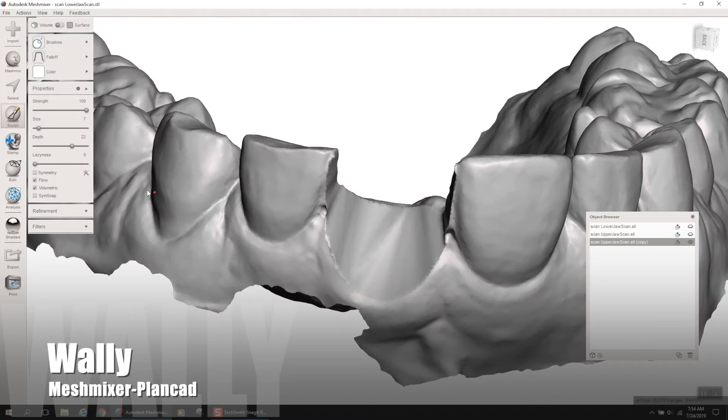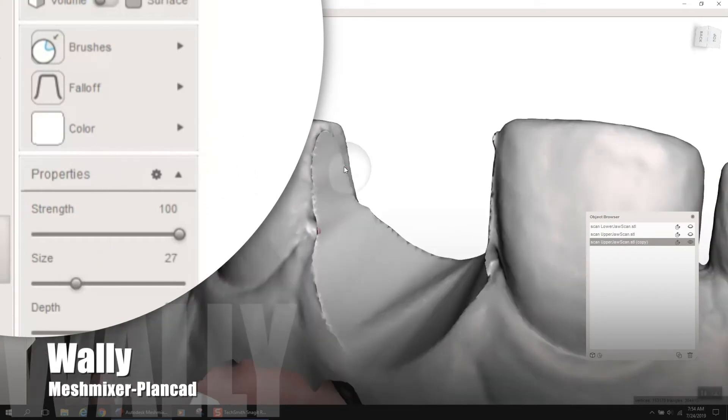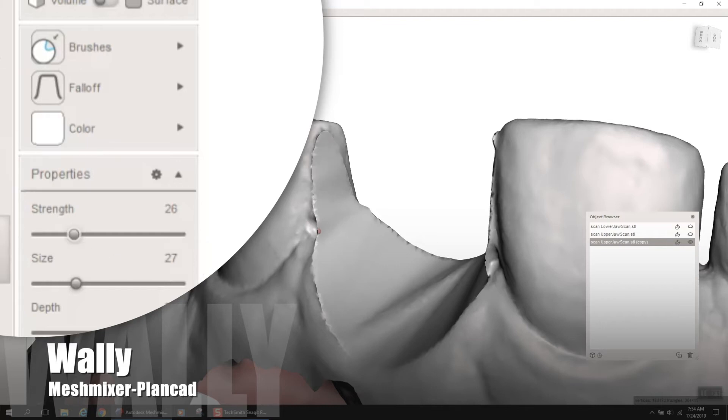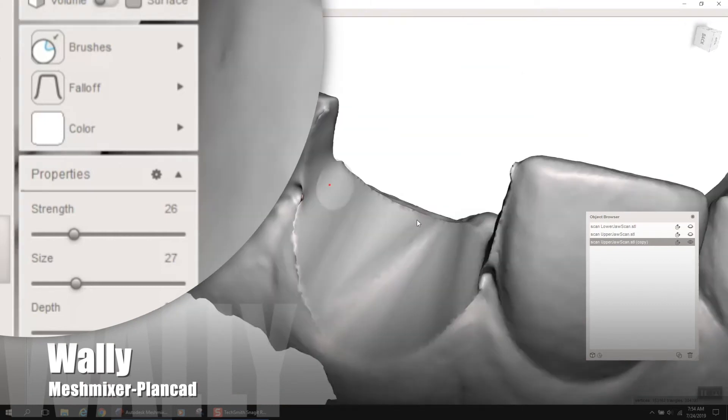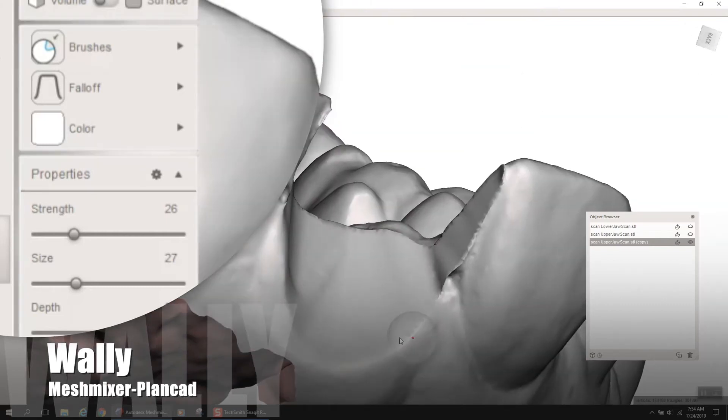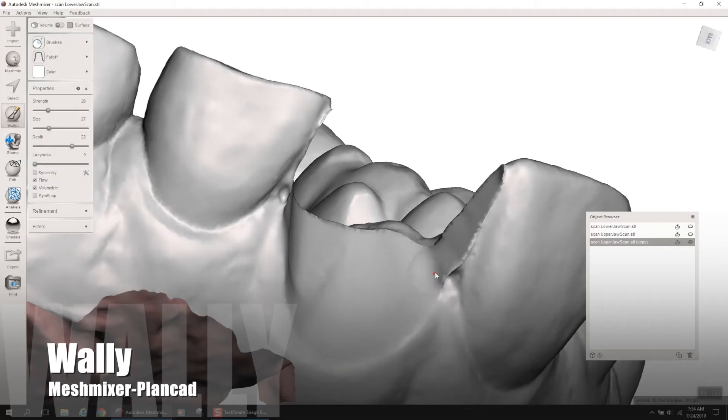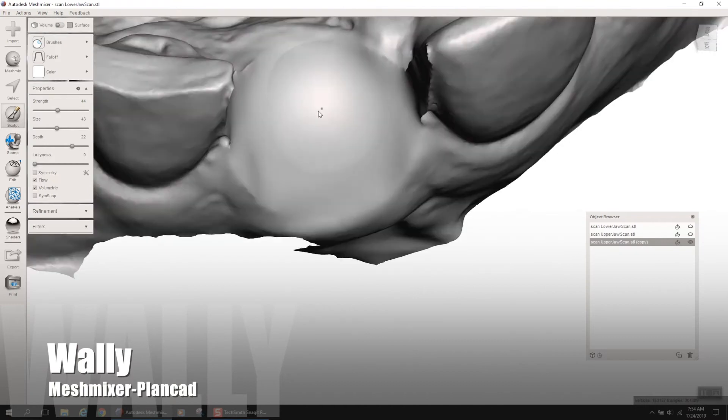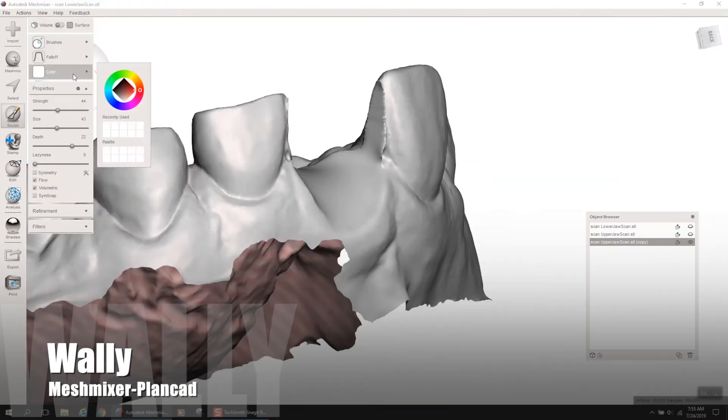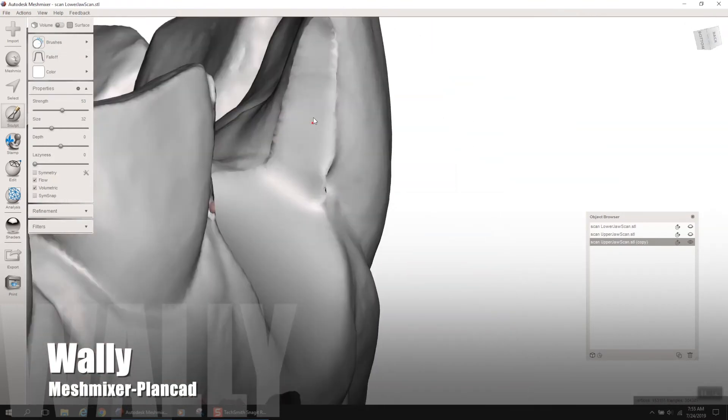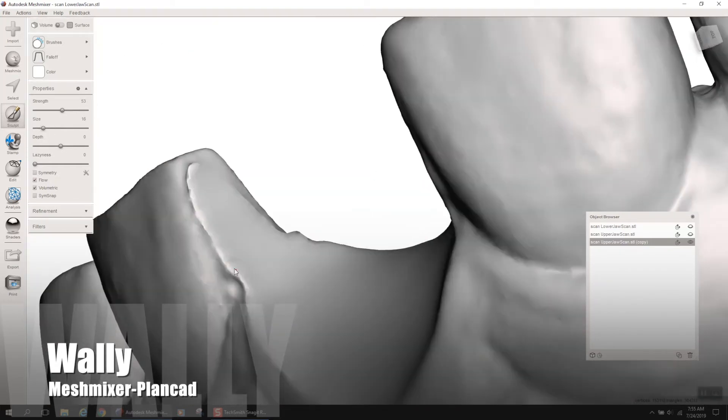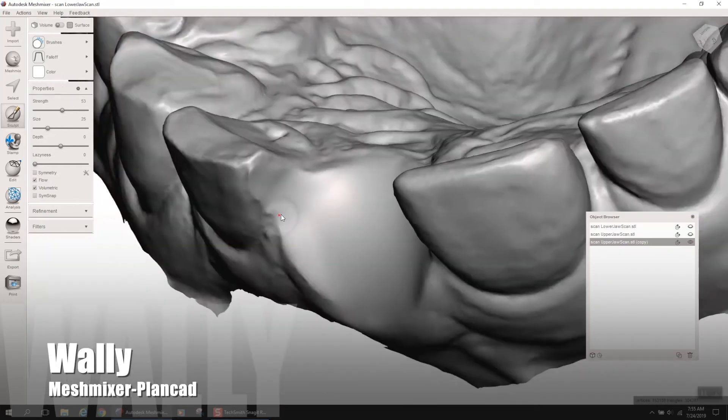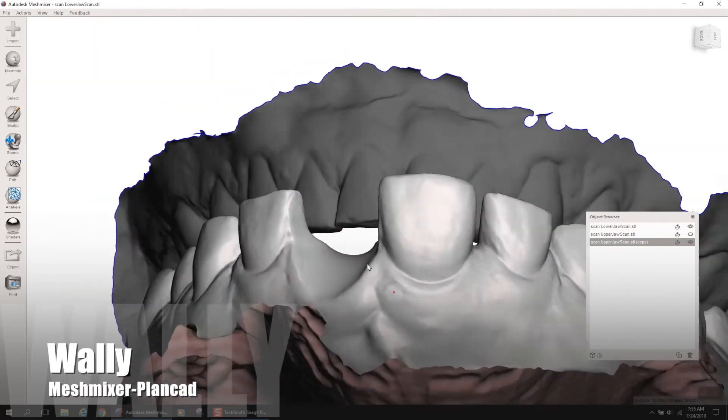And now, you'll notice I left a little bit of extra material on the interproximals of tooth number 8 and 10. So, I'm going to use some tools to smooth it. In this instance, I'm using bubble smooth. And bubble smooth under your brushes. Put the strength down and hold control. And when you hold control, it's going to melt away a little bit of material. So, you could kind of smooth those borders. I'm just going to speed this up so you don't have to be bored. And if you don't hold control down, bubble smooth will actually inflate. There's an inflate tool, but that's kind of very aggressive.